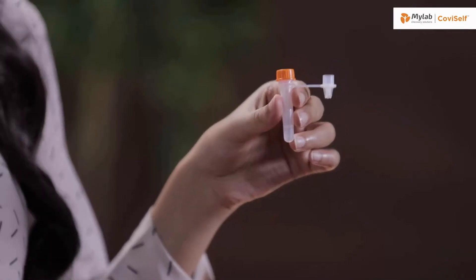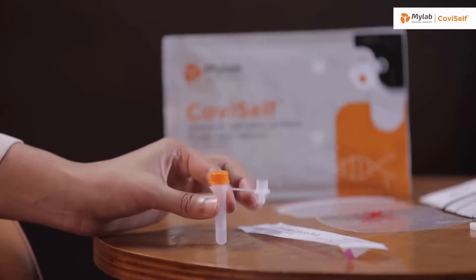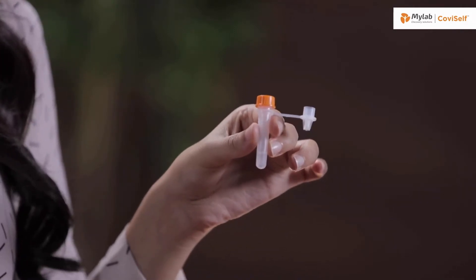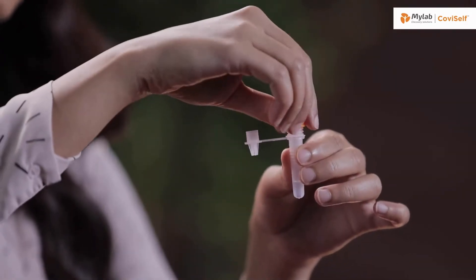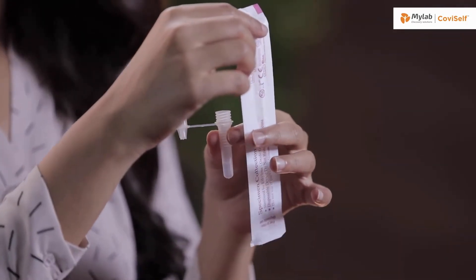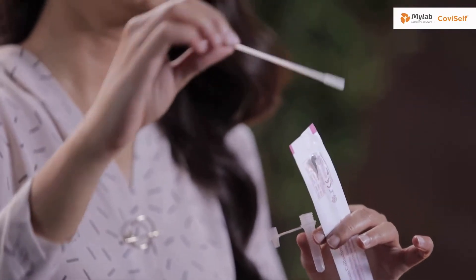Let's begin with the test. Take the pre-filled extraction tube and tap it gently three or four times to ensure that the liquid settles at the bottom. Unscrew the cap and hold the tube in your hand. Open the sterile nasal swab while holding the tube in your hand. Tear it from the tail end. It's important that you do not touch the swab head.